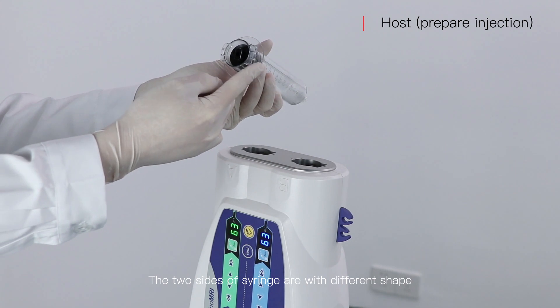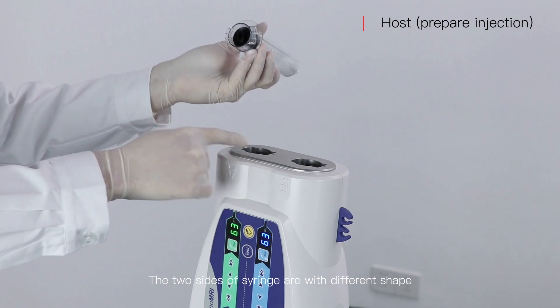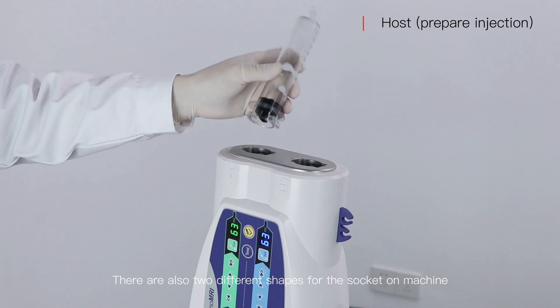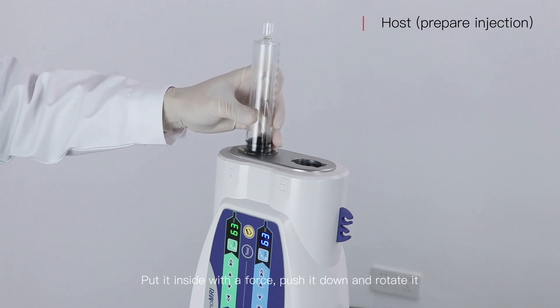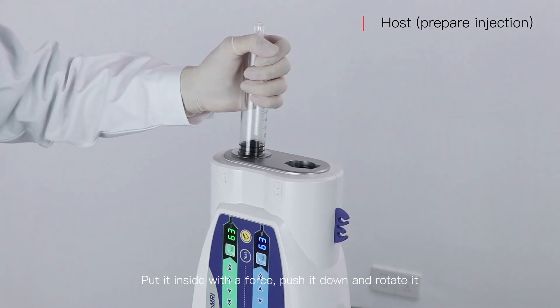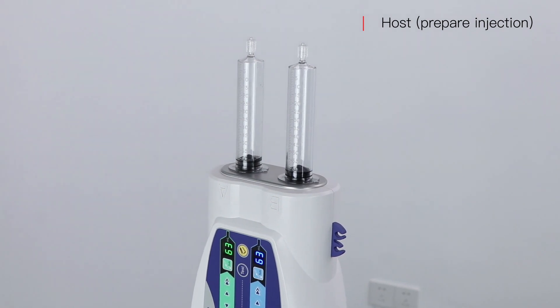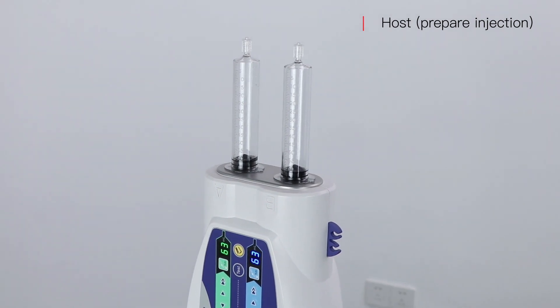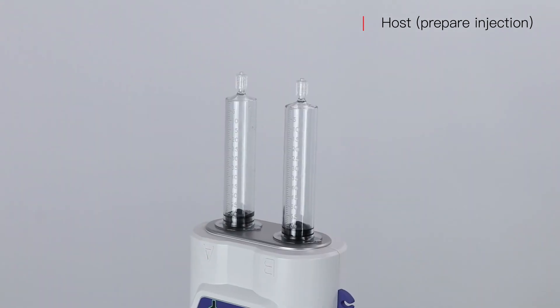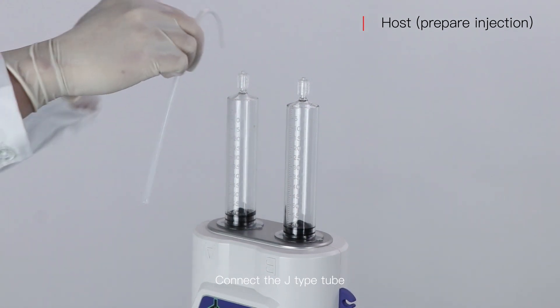The two sides of the syringe are with different shapes. There are also two different shapes for the socket arm on the machine. Put it inside with force, push it down and rotate it. Then connect the J-type tube.